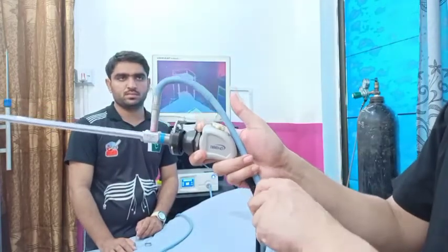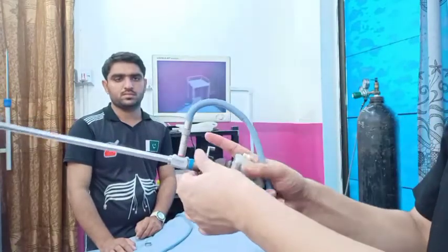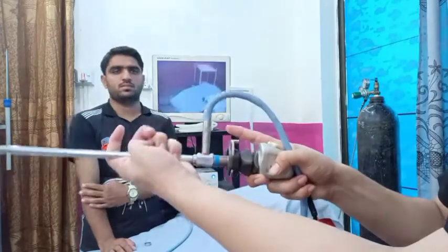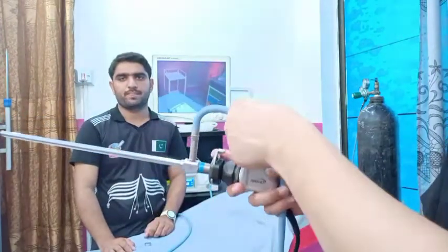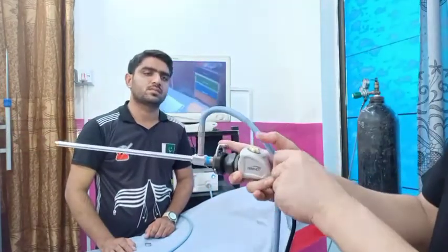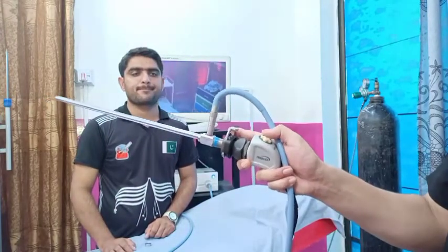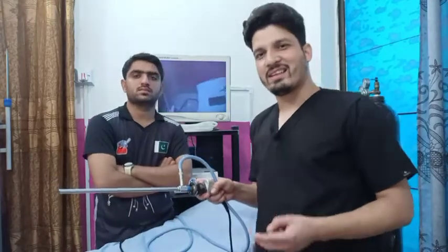Your optical cable light source cable should be between your fingers so it does not move. Don't hold it like this, otherwise it will fall and might get damaged. Your thumb should be free to adjust the white balance and other things.